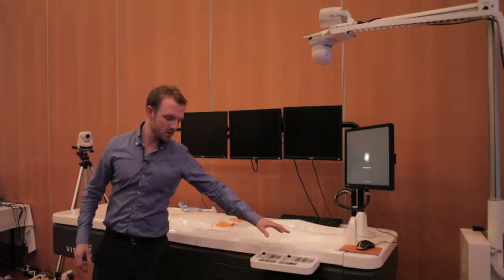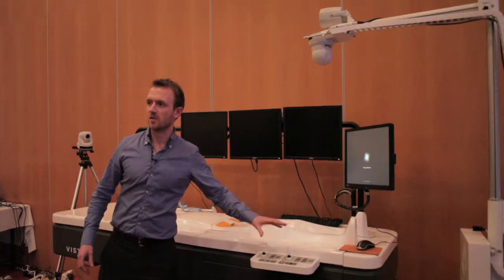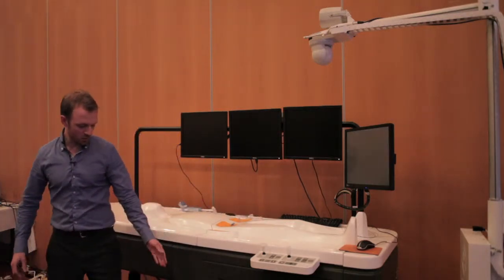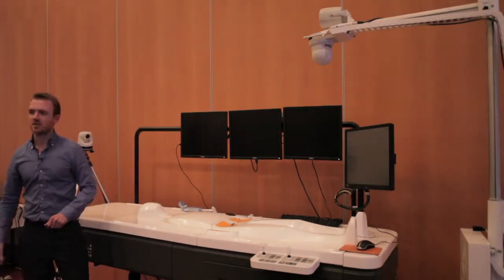We have the control panel with the table controls and the c-arm controls. On the floor, we have the x-ray and the cine loop pedals.